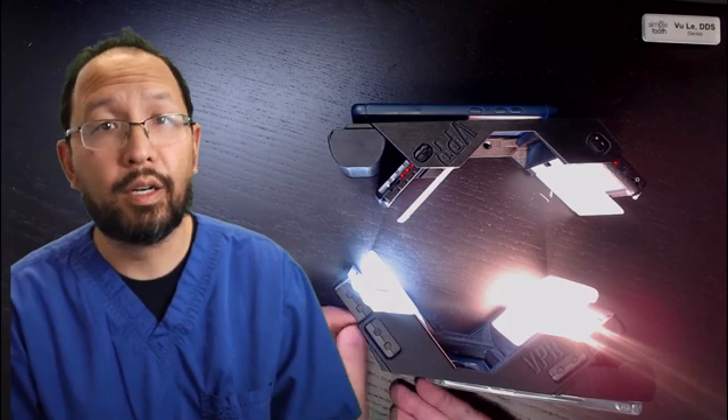If you look on the side of the unit, you'll see it has a digital display. On each side you can see the power level or intensity, a digital battery gauge, and the color temperature. Every time you turn it on and off, it remembers the last color temperature and the last brightness setting you used, so you can keep it consistently at, say, 30 percent brightness for longer battery life, or crank it up to 100 percent for some eye-searing brightness as needed.